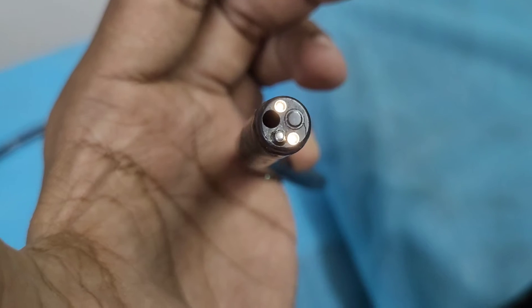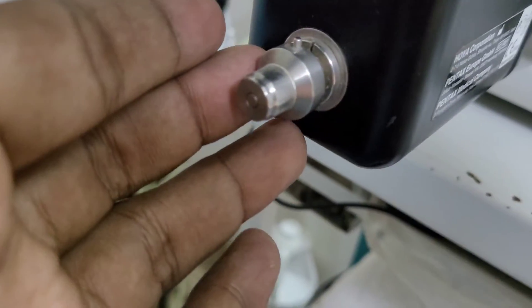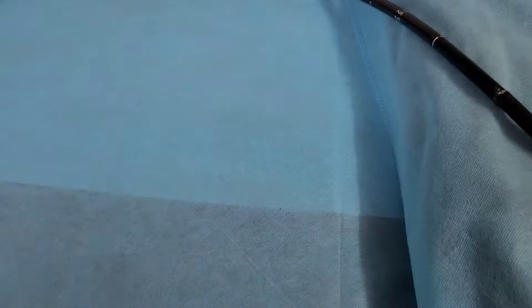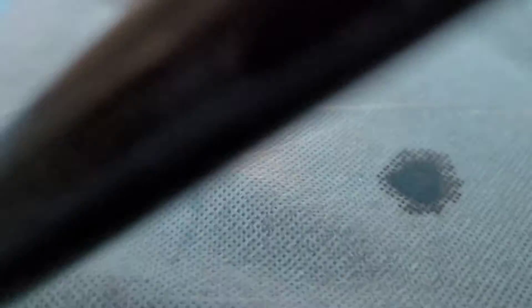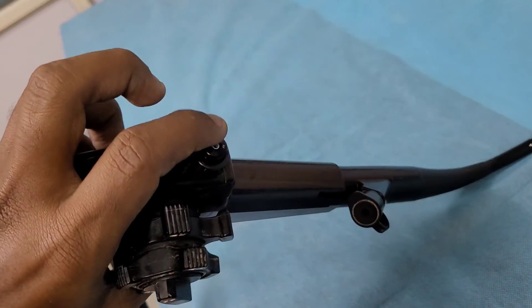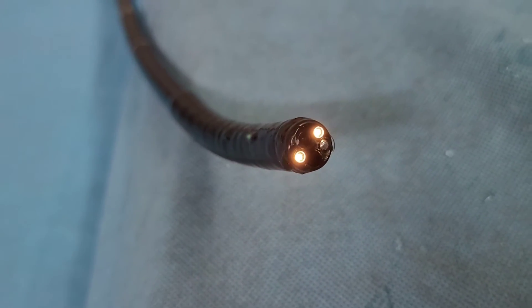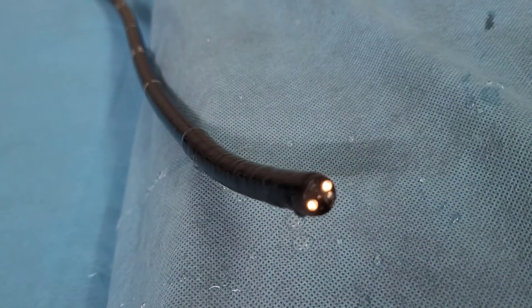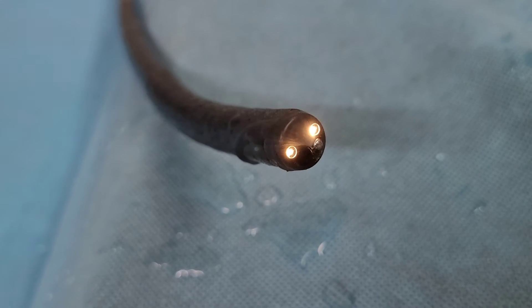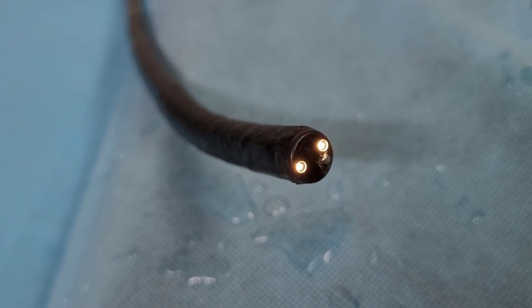The light source is coming from both sides and the camera is in the center. There is also a testing pin — you have to perform a leak test first before using the device. You can check the lens cleaner with the air-water switch. As you can see, this is how the lens is cleaned by the water jet inside the body.